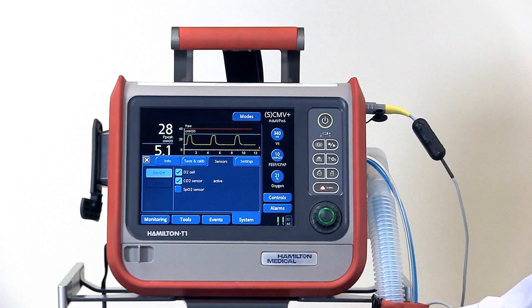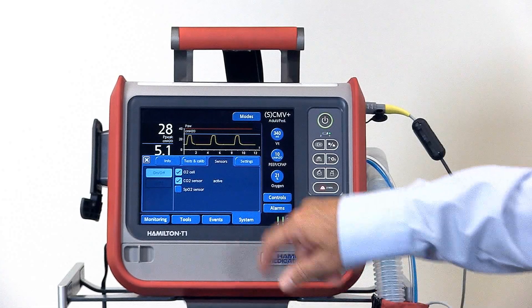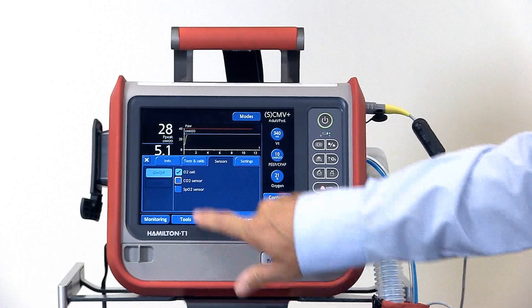In the sensors tab, you'll find the controls for turning on and off each sensor, such as the CO2 sensor.